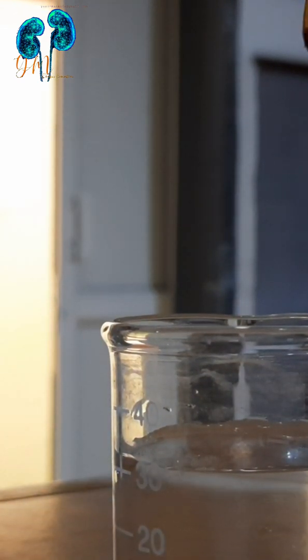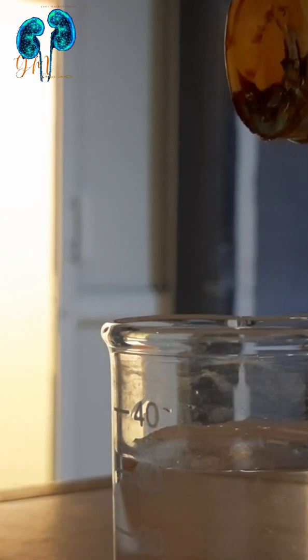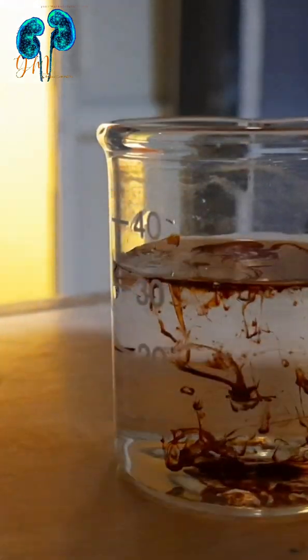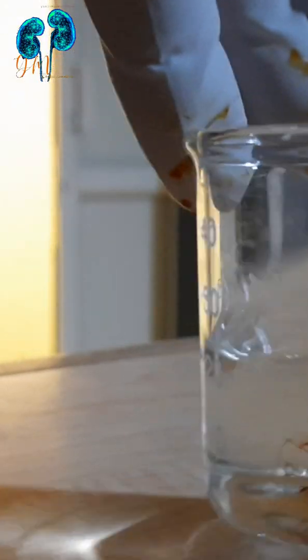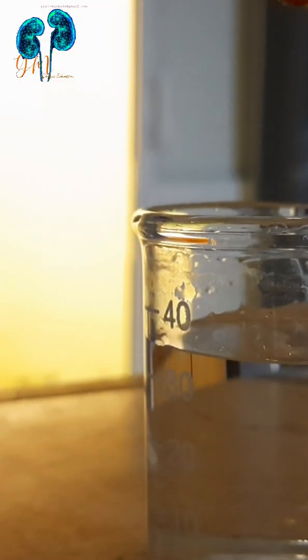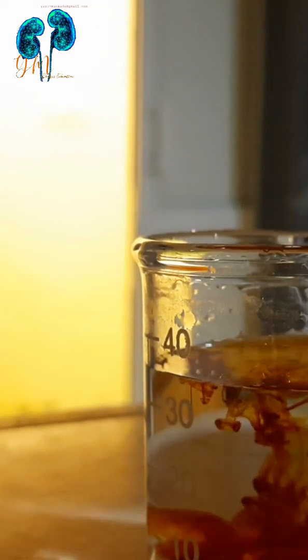If the water turns as clear as pure water, that indicates the presence of bleach. In this situation, we have to drain more water again until the color changes. Color change means that after pouring povidone-iodine into the water, it will turn brown like povidone-iodine — that indicates there is no residual chemical.